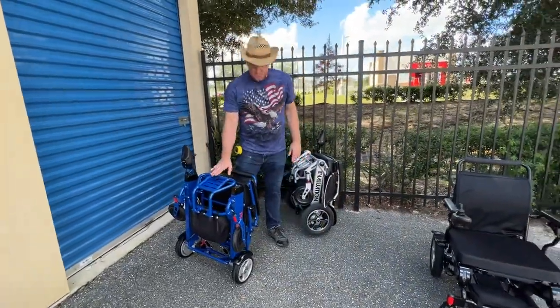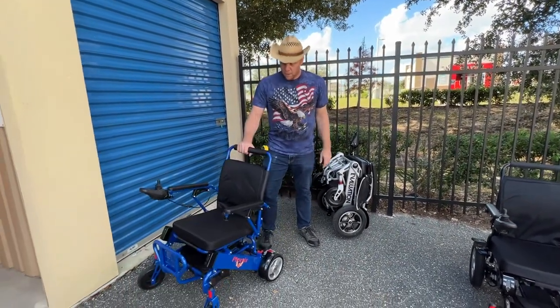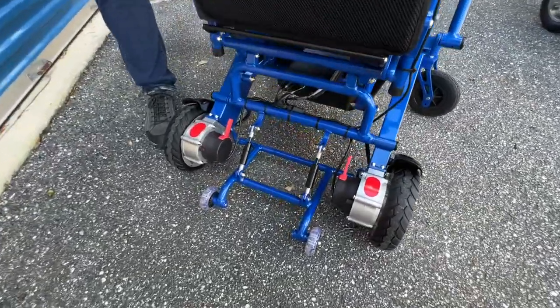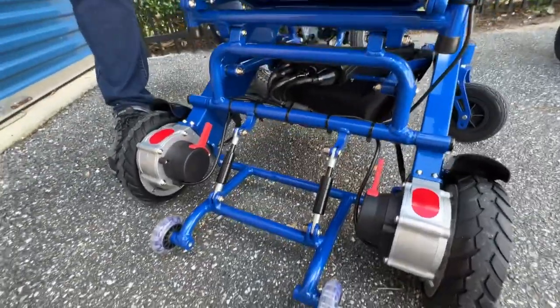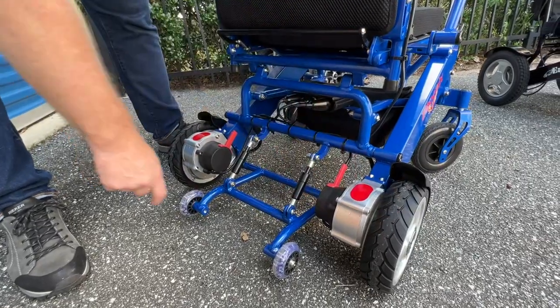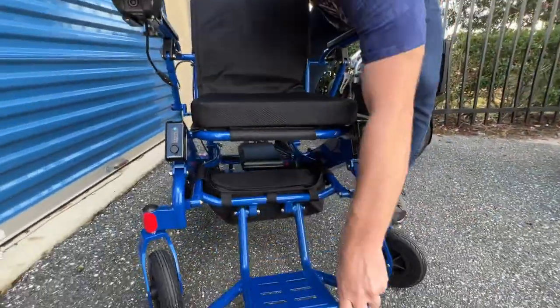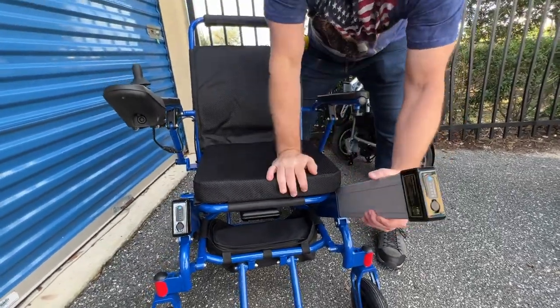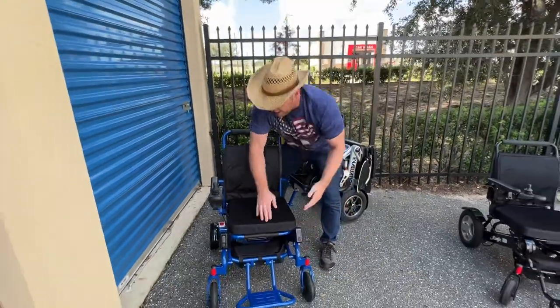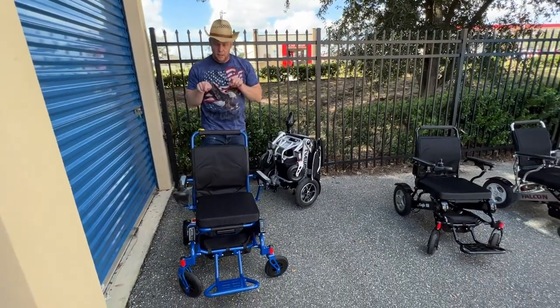We're going to go to the Phoenix. Unlike those three chairs, this holds up to 265 pounds. Folds up the same way. You can see in the back that it has kickstand wheels — some people think of those as anti-tip wheels, but they function to help the chair roll when folded. This has eight-inch rear wheels and two 180-watt motors. The footrest folds down and the batteries are the simple in-frame batteries. It's an FDA approved, FAA travel approved chair, and this was a brand new model in 2022. We've had a very difficult time keeping the Phoenix in stock.